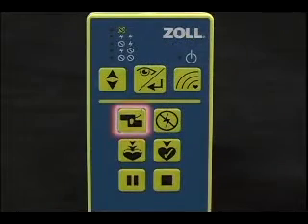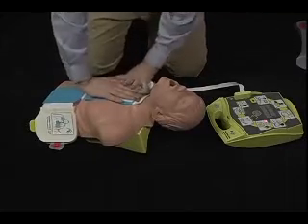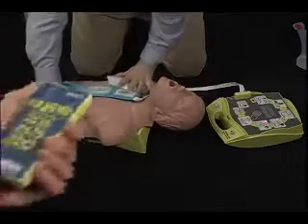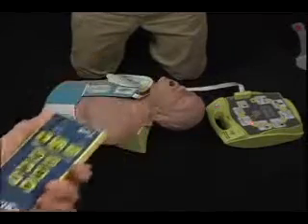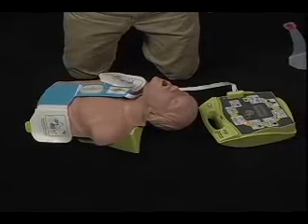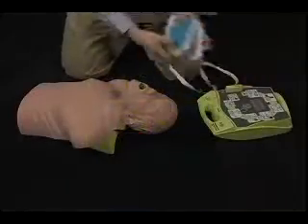The top left button, the pads button, is used to let the Trainer2 unit simulate when pads have been attached and are in contact with the patient's heart. In all scenarios, when the Trainer2 unit says, Attach defib pads to patient's bare chest, it will keep repeating this prompt until the pads button is pushed once to simulate pads attachment and heart rhythm detection. The pads button can also be used to indicate that a student has attached pads quickly, which will cause a jump to analysis.